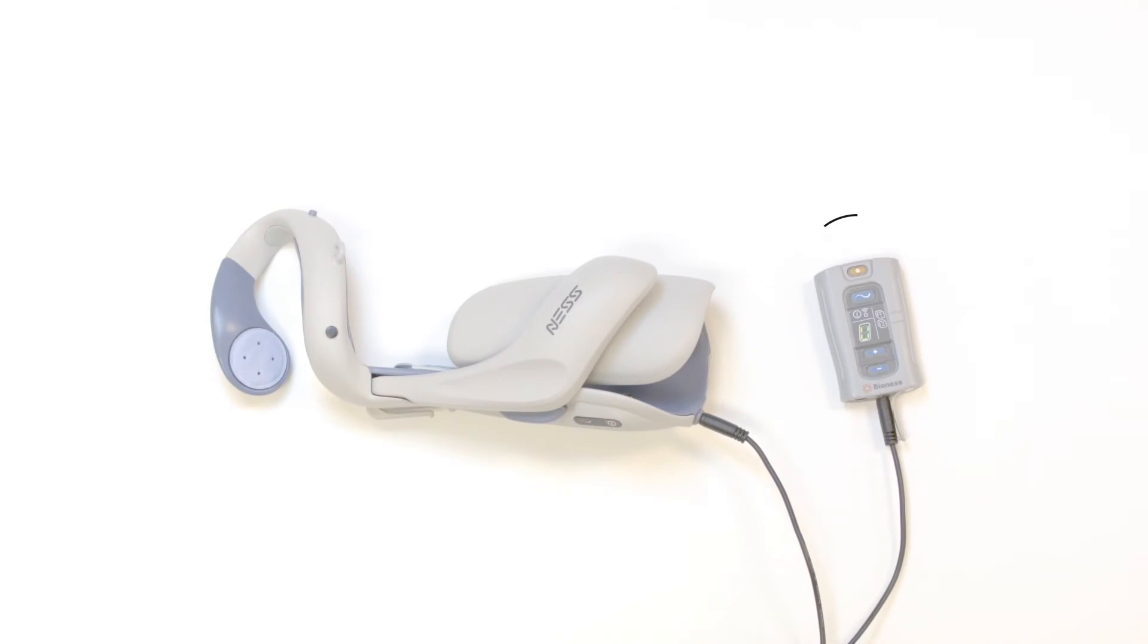Make sure your system is turned off. The power green button should not be blinking. Press and hold the minus and mode buttons at the same time for about 3 seconds.